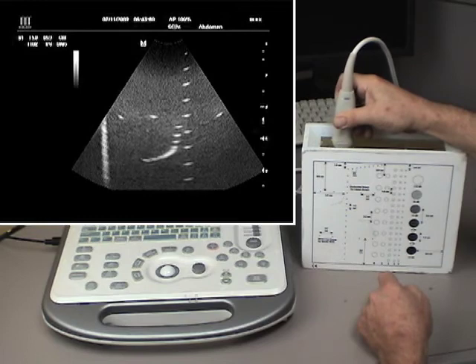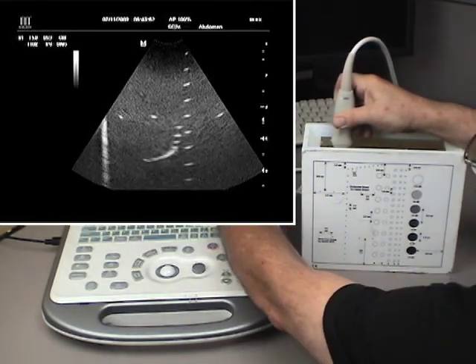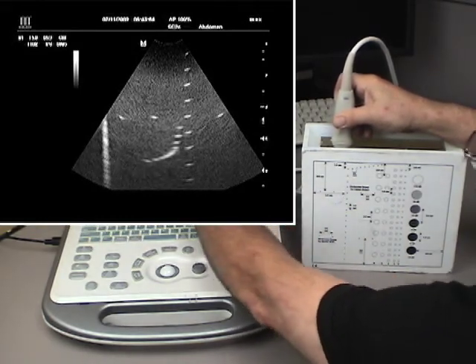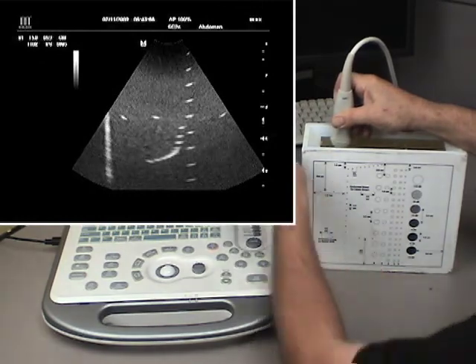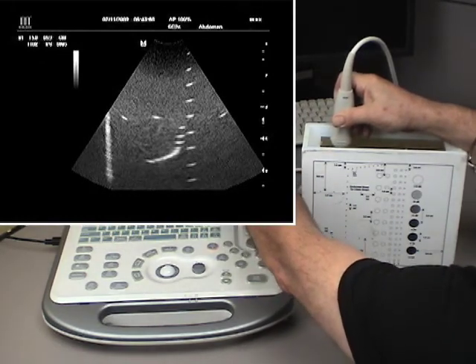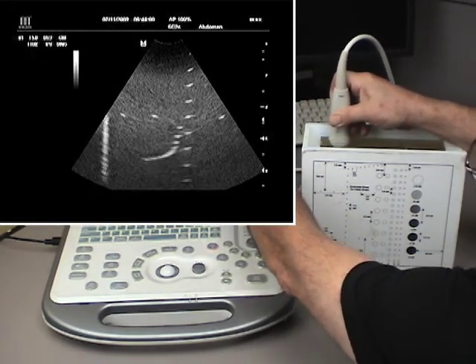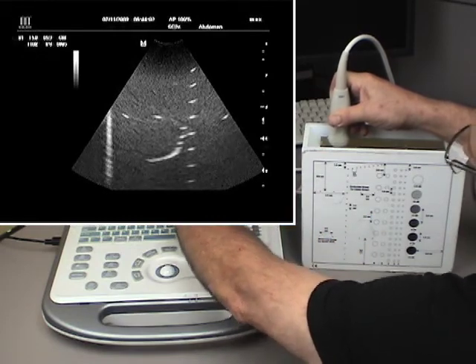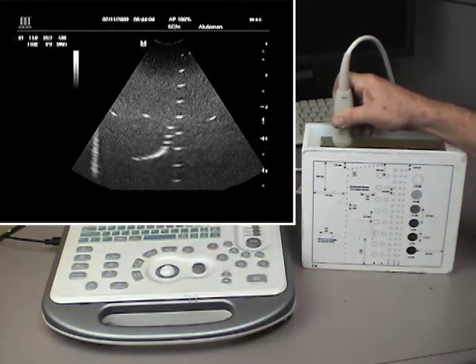And when you look at your resolution, you're looking for axial resolution along the axis of the plane, and lateral resolution. And what you can see is that the axial resolution is quite good, very small in this direction. Lateral resolution is not so good. It's spreading out.